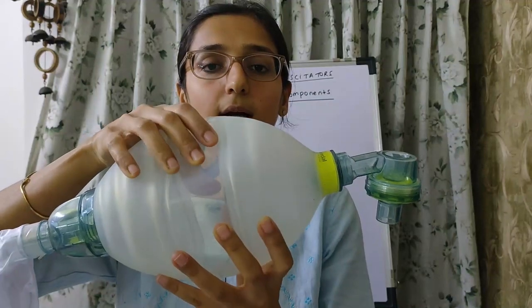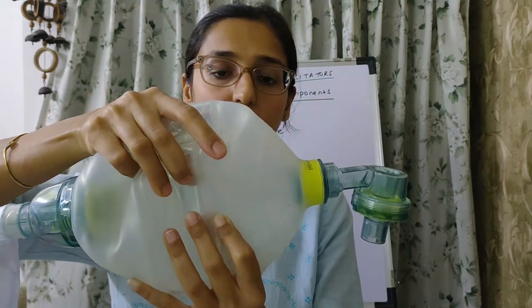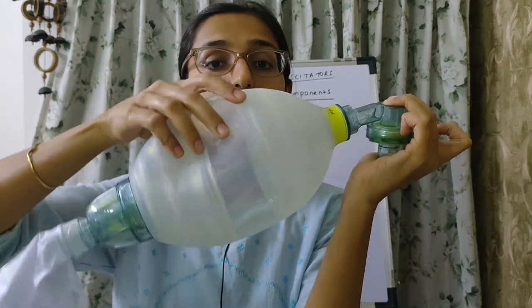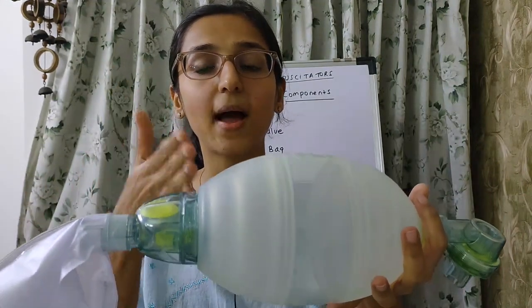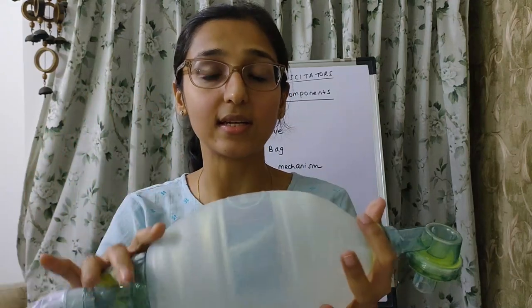The next test: compress the bag completely, then release it with the patient end occluded. The bag should self-inflate, proving that the intake valve and bag refill valve are patent and able to entrain gas.